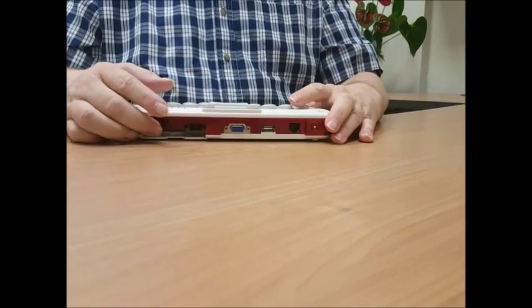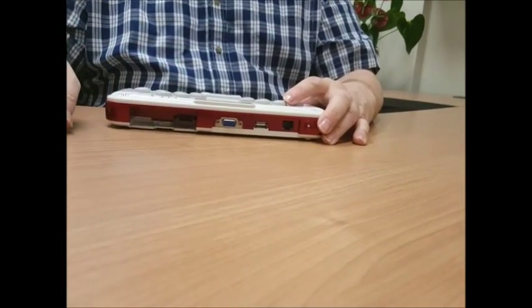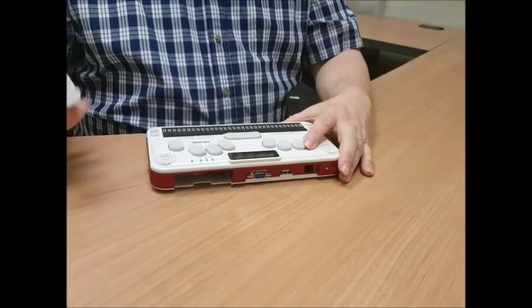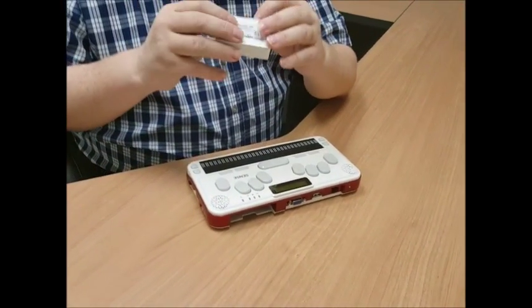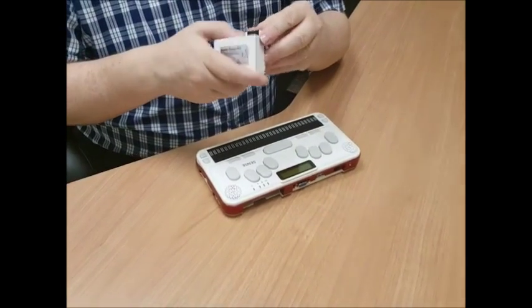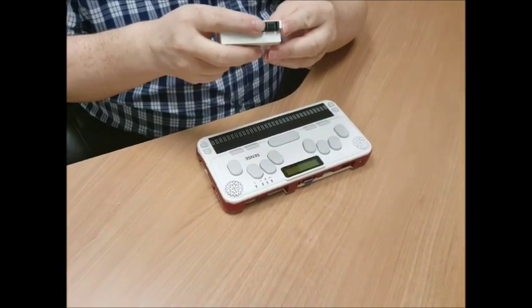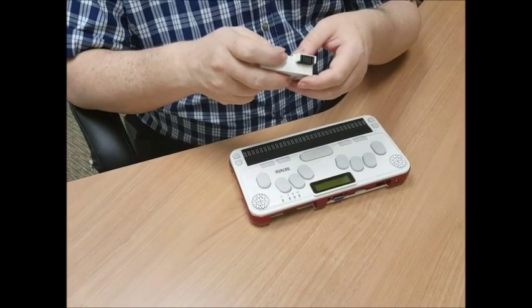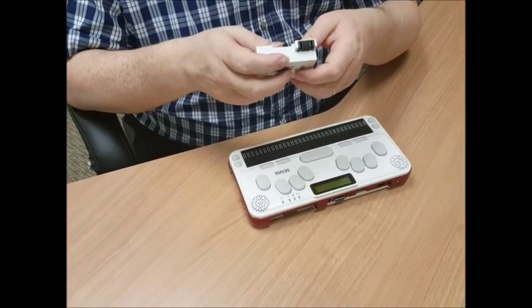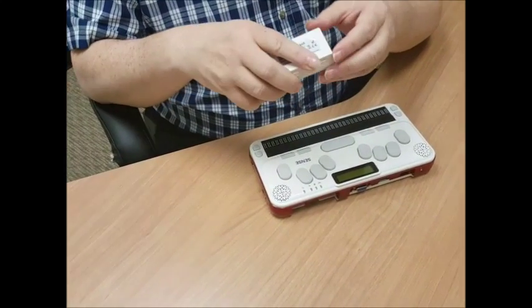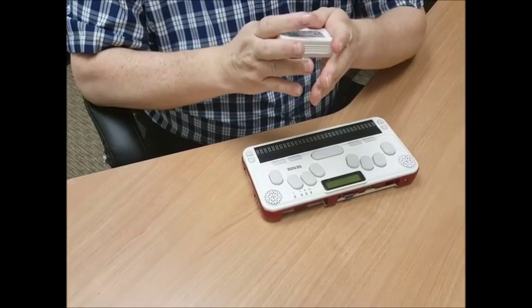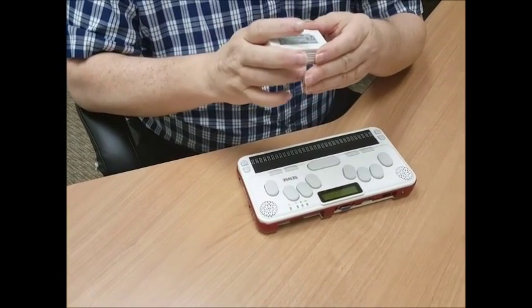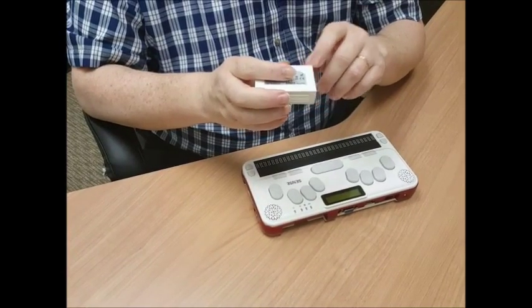And then we have kind of an open spot right now, which is where the battery is going to go. And I now have the battery in my hand. The battery is kind of a rectangle shape with a part on it that kind of sticks out away from the rest of the battery. And as you hold it and get it ready to orient it to put it in, you want that part that comes out to be on the bottom left corner with the battery held long ways between your hands. That connector will be on the left bottom of the battery.